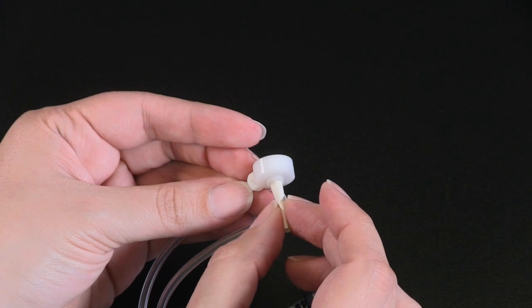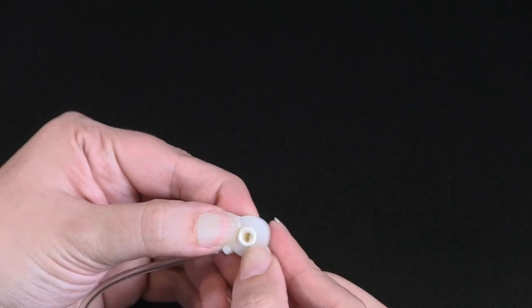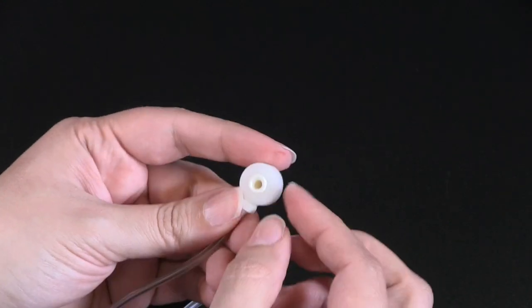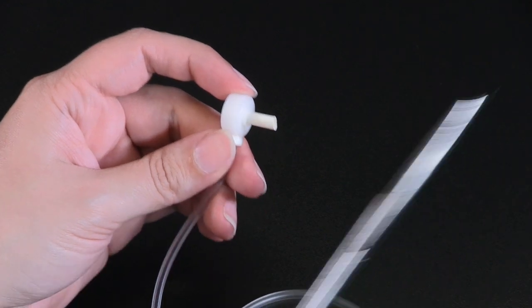Select a new bladder and insert it through the cuff. Beginning on one end, fold and stretch the edge of the bladder over the lip on the inner part of the O-Cuff body. You will be left with excess material on the other side that can be trimmed with a pair of scissors.